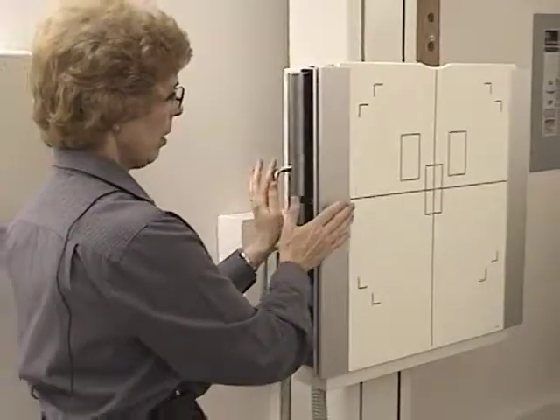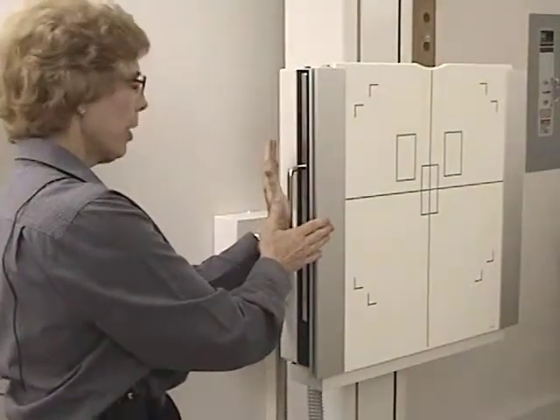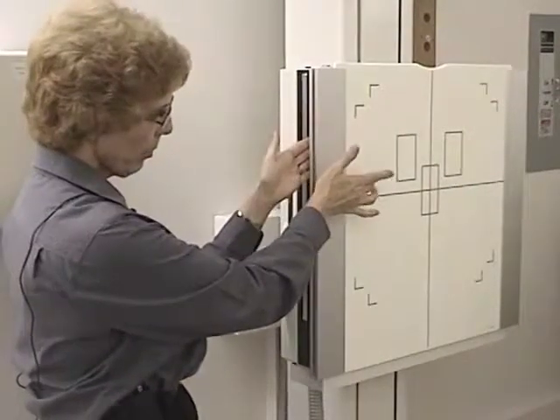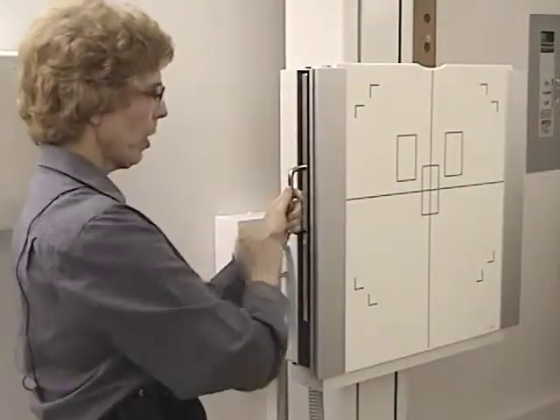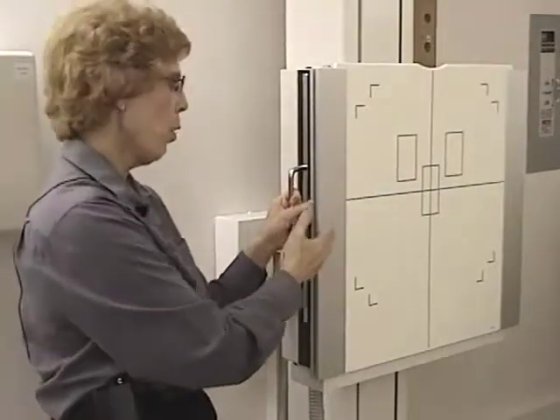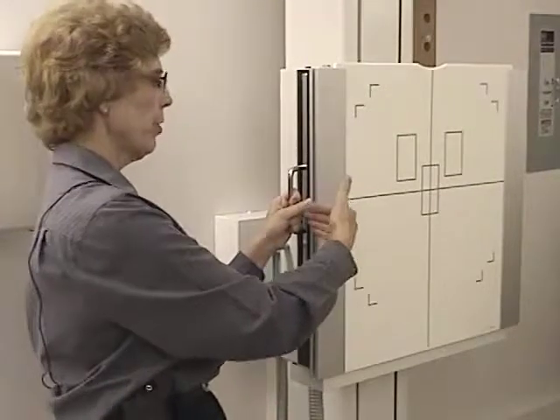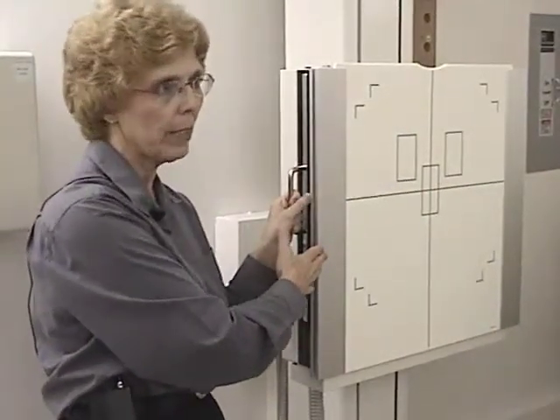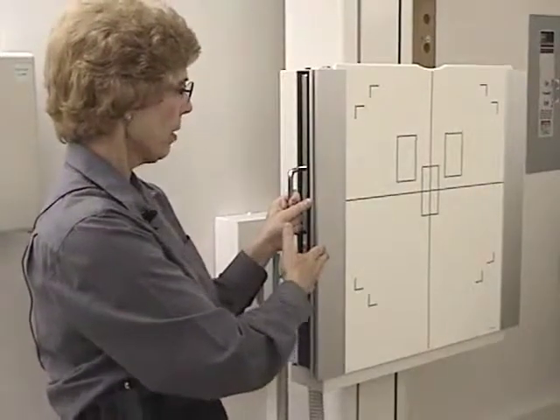in, and knowing that the grid, which is a movable grid called a Bucky, is right there underneath the outside and before you get to the film. Sometimes your upright film holder won't have a movable grid, it will just have a grid. And in that case it's a fine line grid, and you may see grid lines on that image.